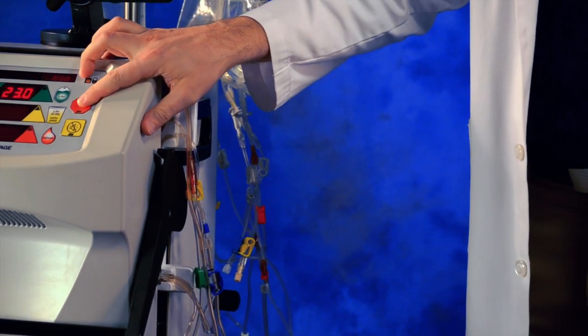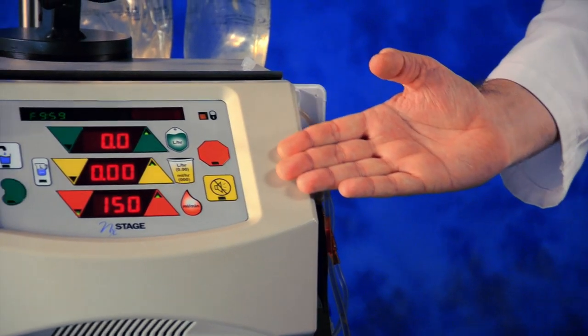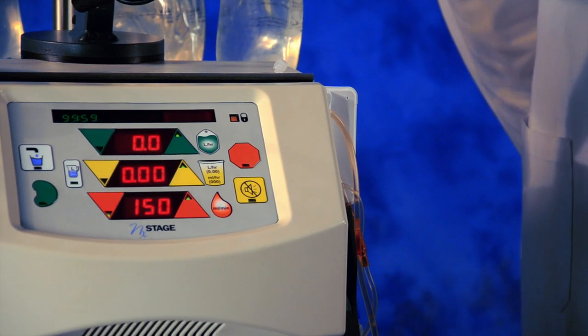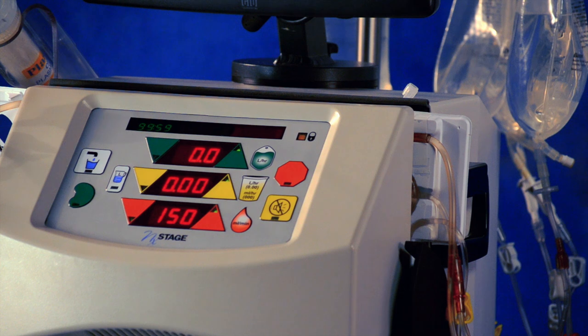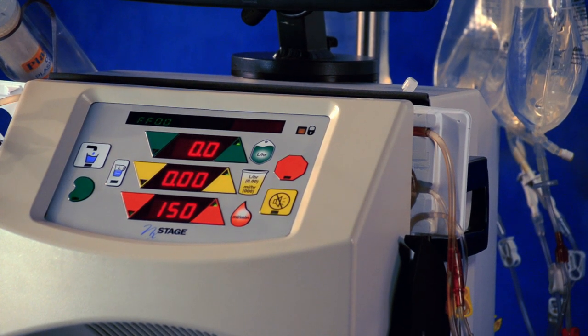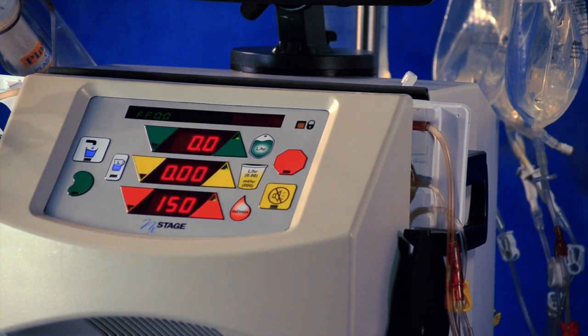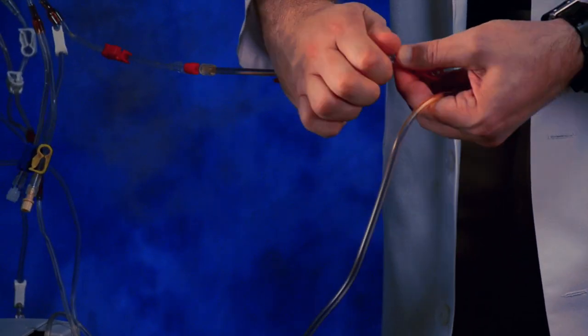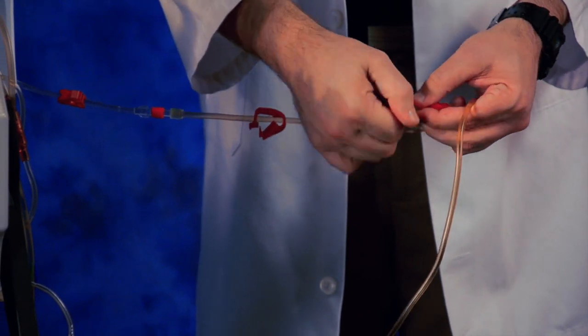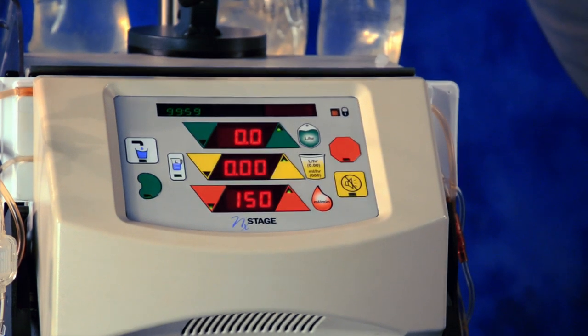Press stop. Confirm that default treatment rates are displayed. Prime is now completed. All pumps are stopped and all safety alarms are armed. You are in patient connect mode. Prime the pre-pump T and clamp. You have now completed the steps in prime.